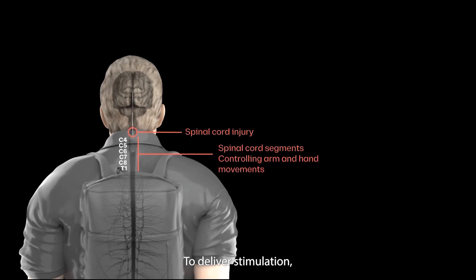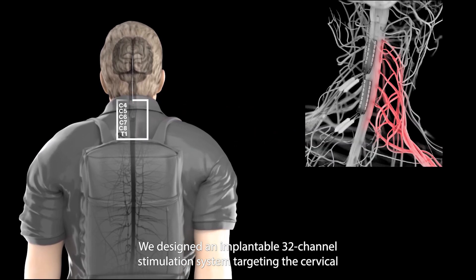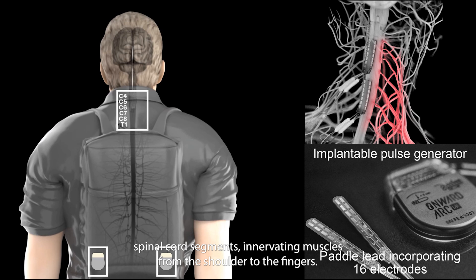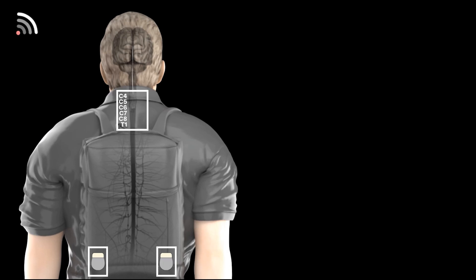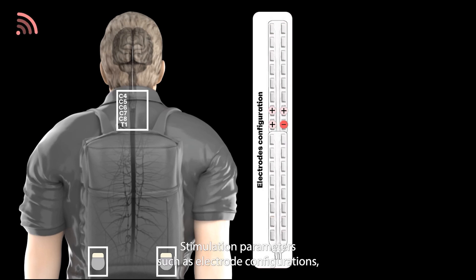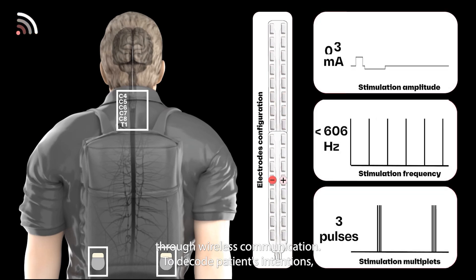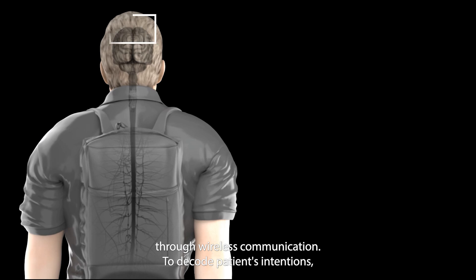To deliver stimulation, we designed an implantable 32-channel stimulation system targeting the cervical spinal cord segments innervating muscles from the shoulder to the fingers. Stimulation parameters such as electrode configurations, frequency and amplitude can be modulated in real-time through wireless communication.